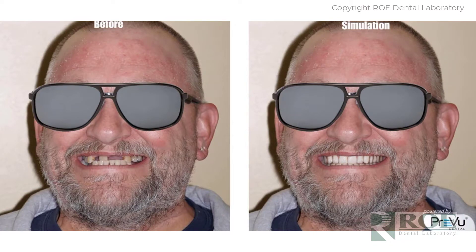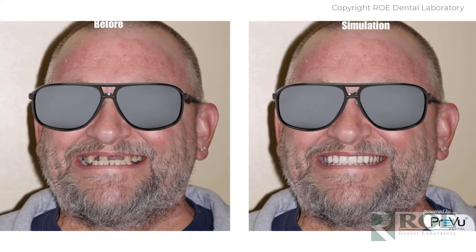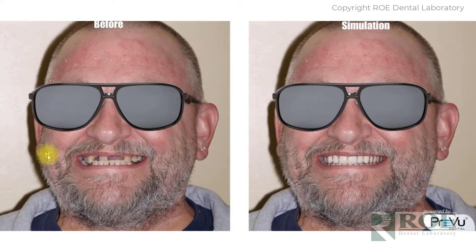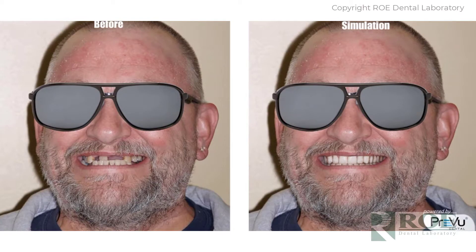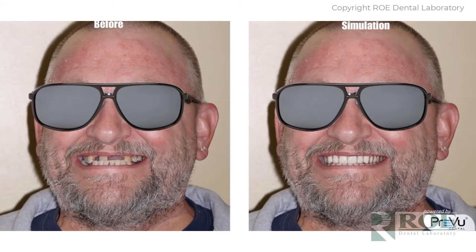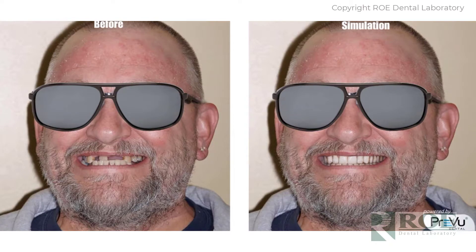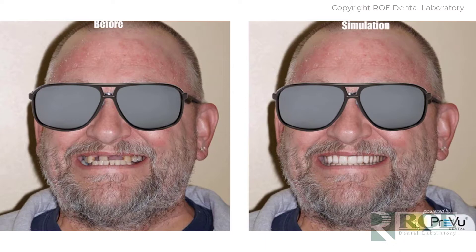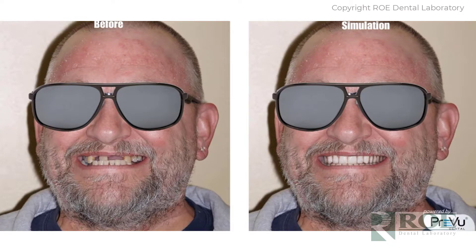As with all maxillary Chrome Guided Smile cases, when appropriate, just about all Chrome Guided Smile cases come with a smile simulation with the full package. We like to make sure that we are delivering exactly what the doctor and patient desire. This will be turned around pretty quickly — 24 hours — and emailed back to the doctor. You can share it with the patient; generally it is shared so everybody's on the same page. The company that does this is Prevu — P-R-E-V-U — a wonderful smile simulation company.